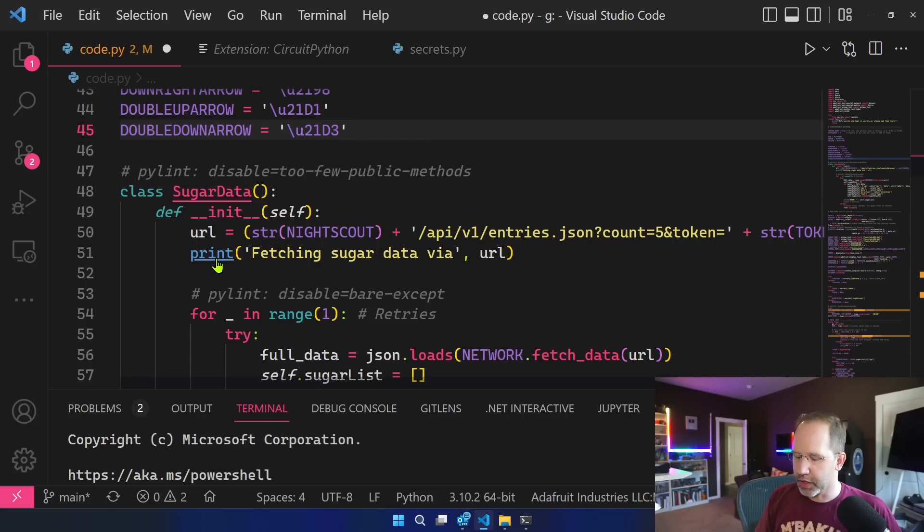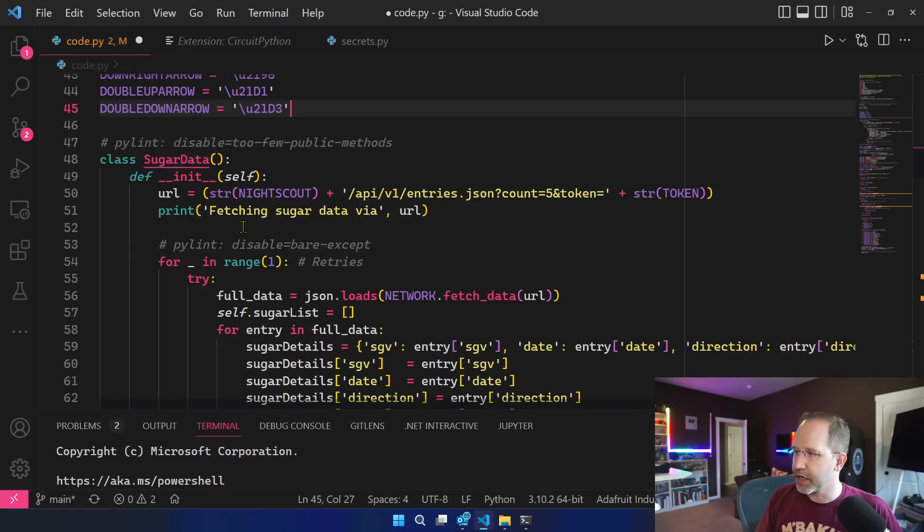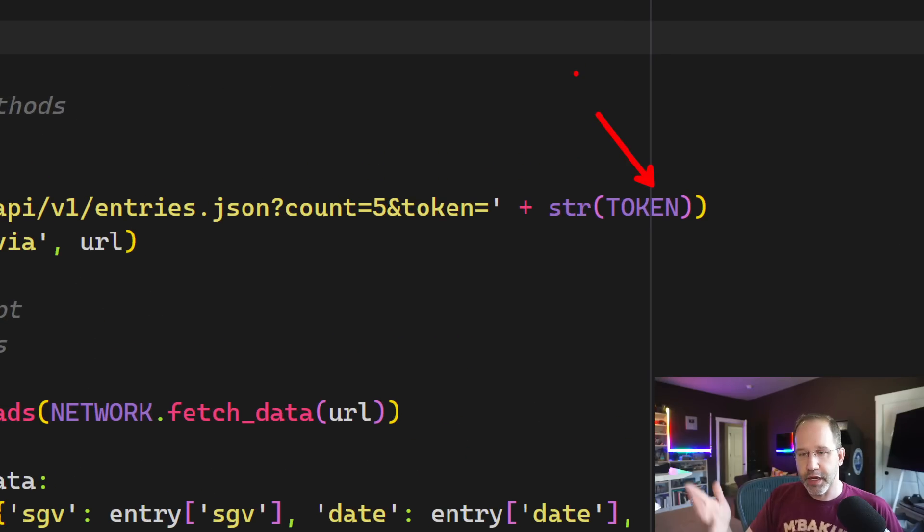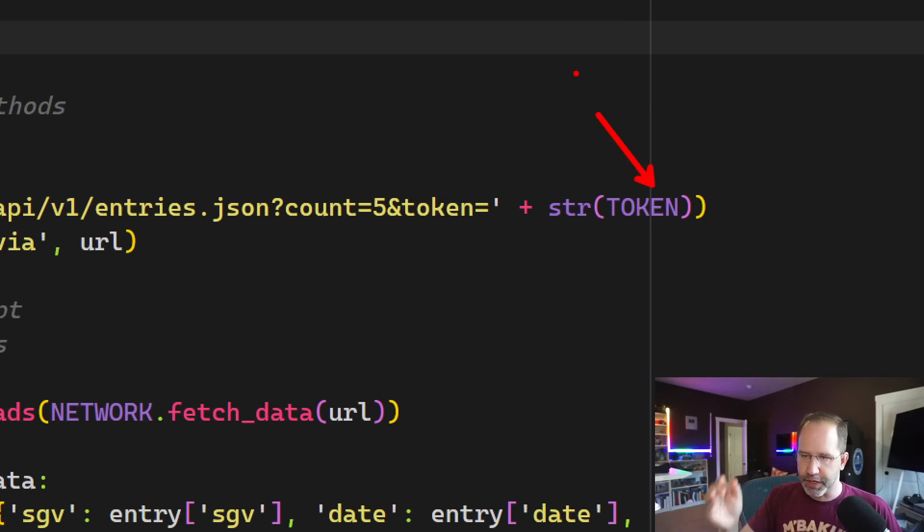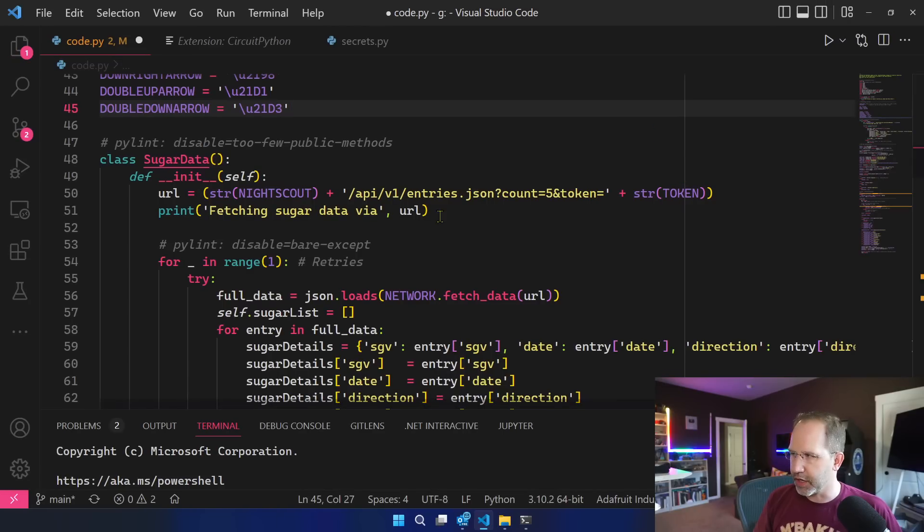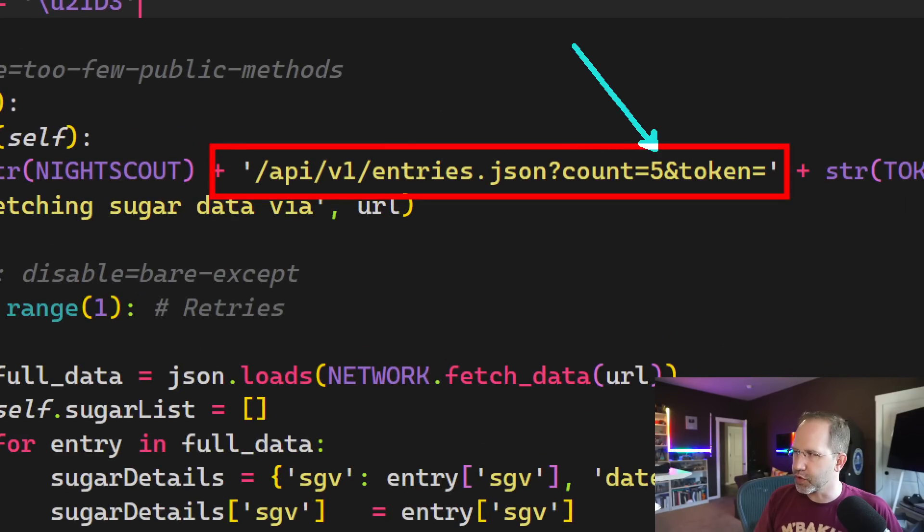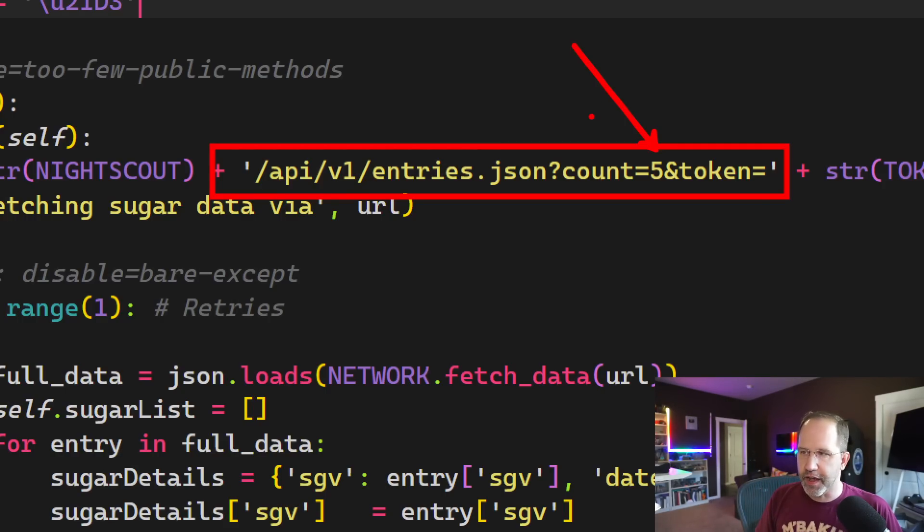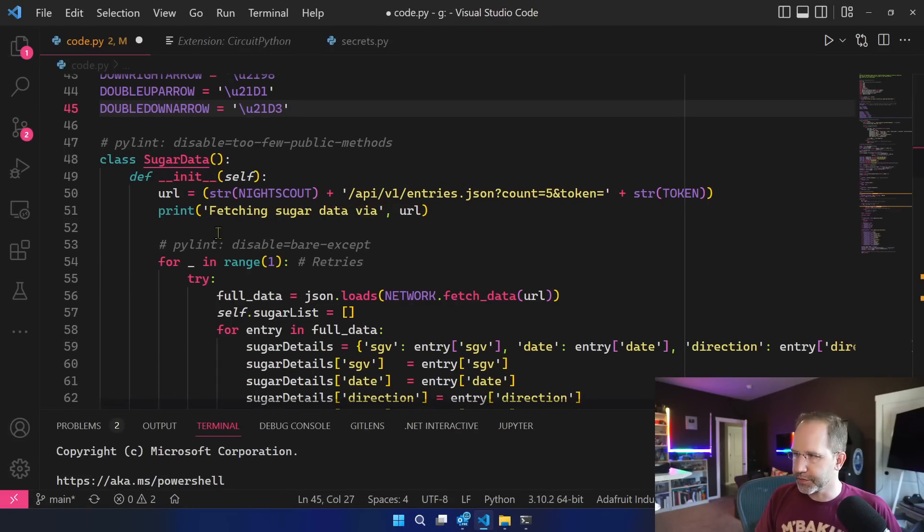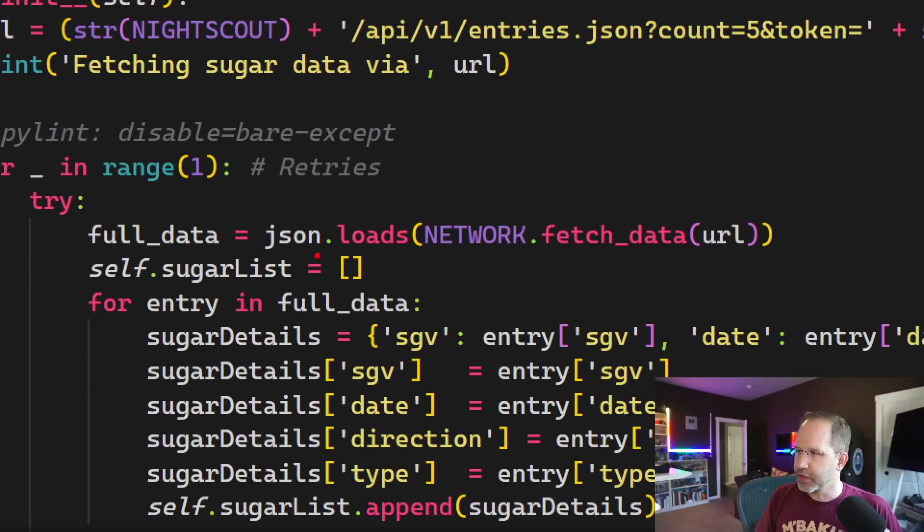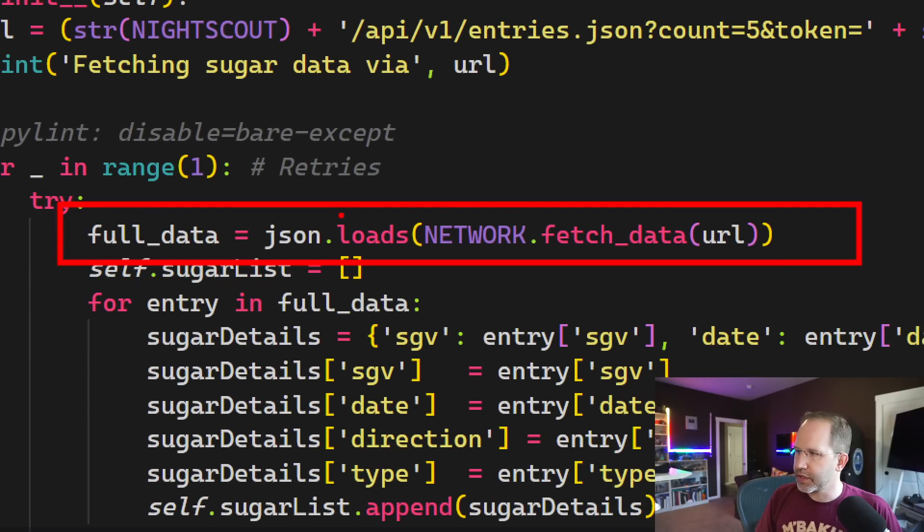Now I don't know the correct ways to do this. I could have asked Copilot but I looked at the sample. If I do this wrong, apologies ahead of time. But basically I just made a class called sugar data to hold my data and then I've got a secret token because my API on the public internet does not allow folks to call and get my blood sugar. Right now I'm grabbing it with NightScout which is an open source project that our friends do and then I'm hosting that in the cloud and I'm grabbing the last five blood sugars from a URL.